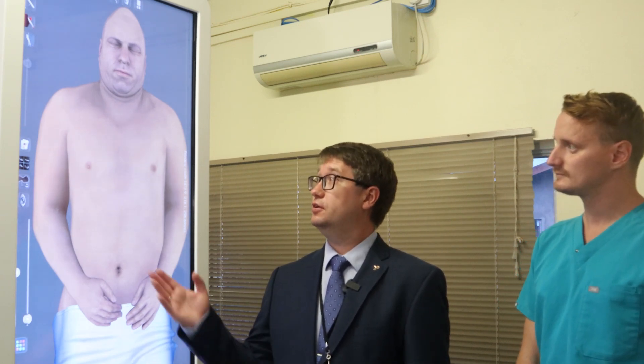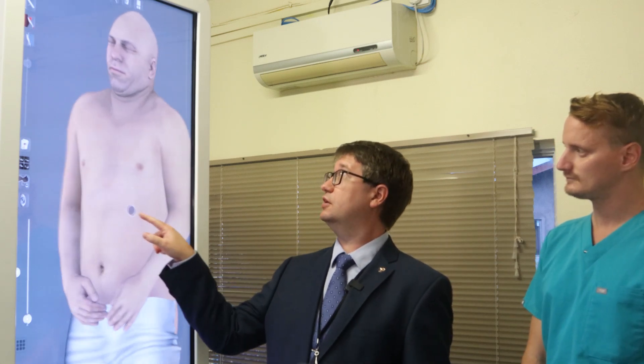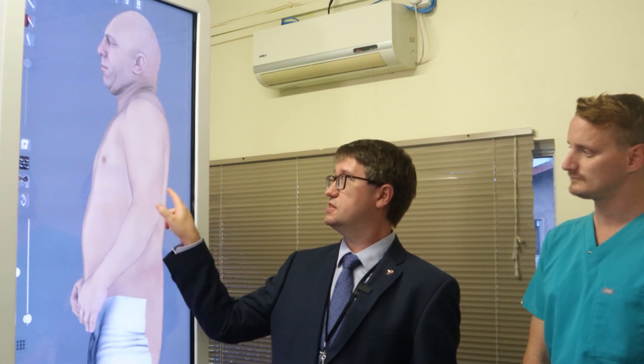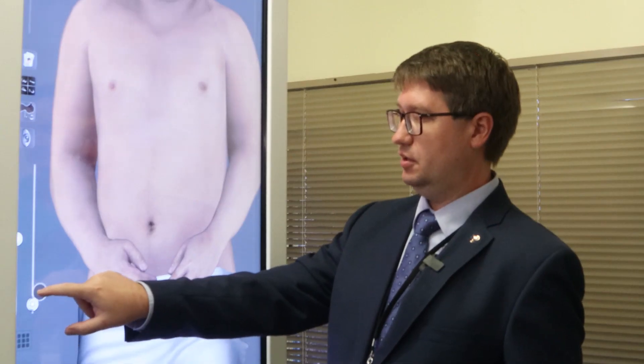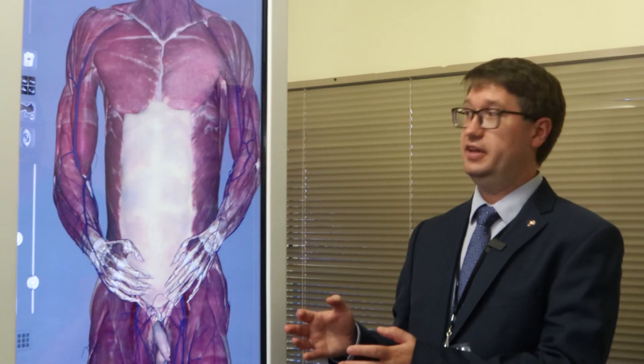Here we have a body — a small body — and you can just rotate it in different planes of space. You can see the back and all other parts. You can select what you are able to see, and here you see muscles and blood vessels, so you have removed the superficial layers.